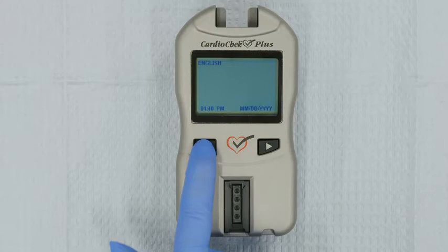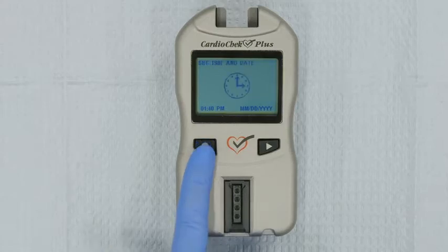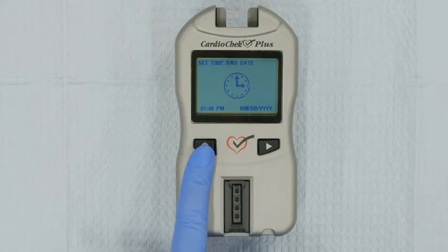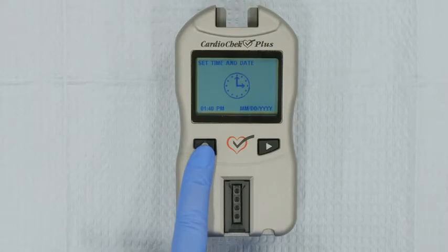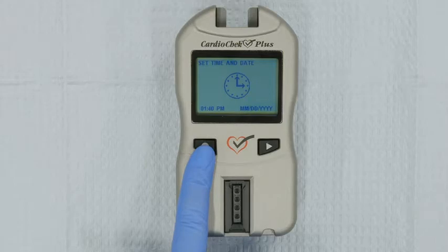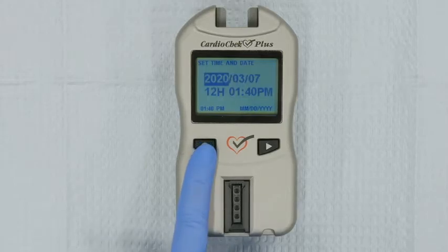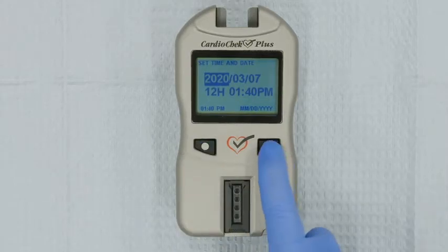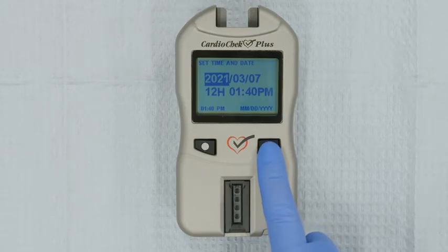Now, let's set the date and time. After setting the language, Set Time and Date will be displayed on your screen. Press Enter. Using the Enter and Next buttons, set the correct date and time on the analyzer.